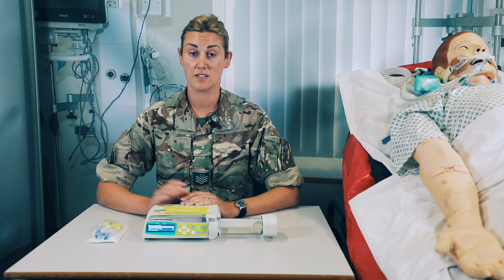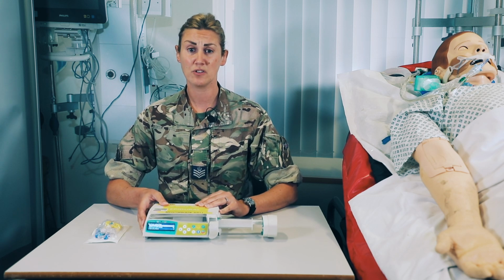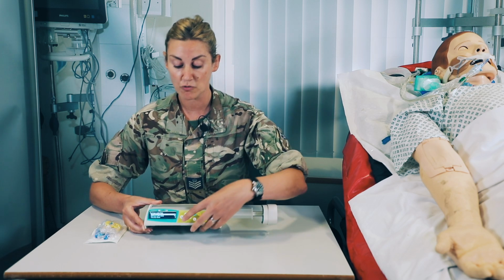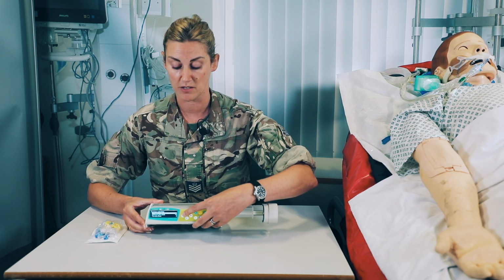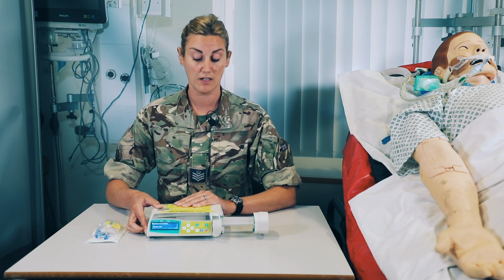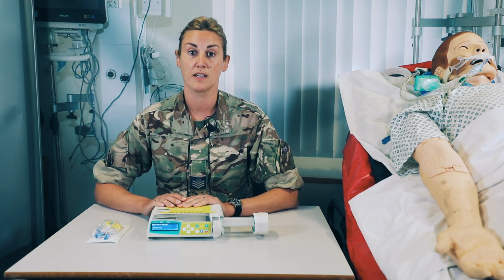It should recognise that a syringe is attached, and usually the first option is the syringe that you're using, but you may need to scroll through the menu to find the correct syringe. Once you've found the correct syringe, press the arrow facing in towards the screen and the drive arm will close against the syringe arm.